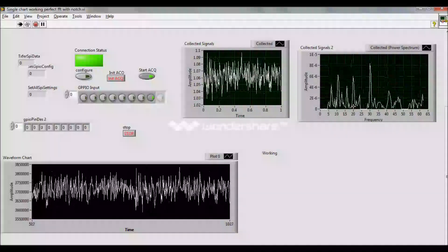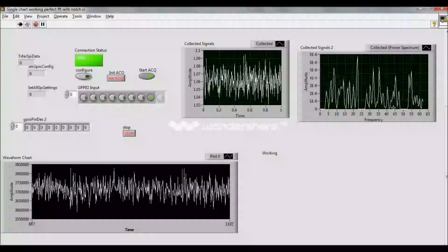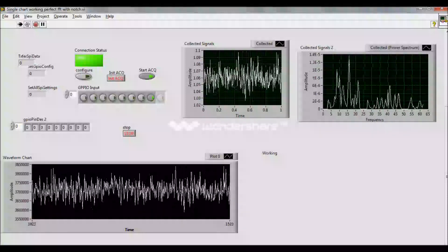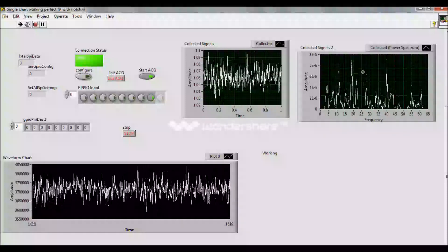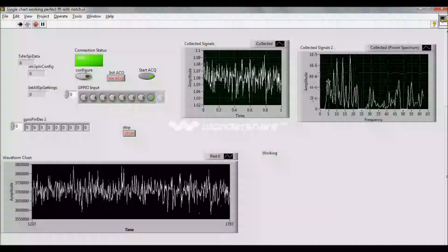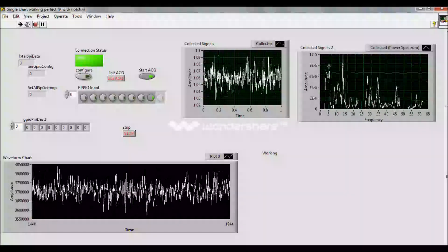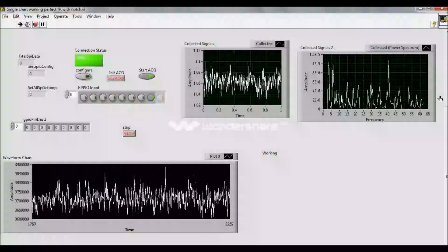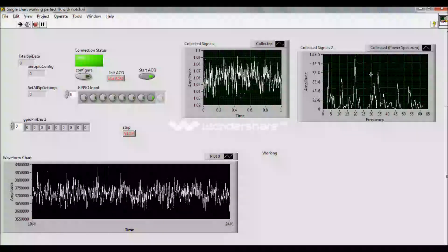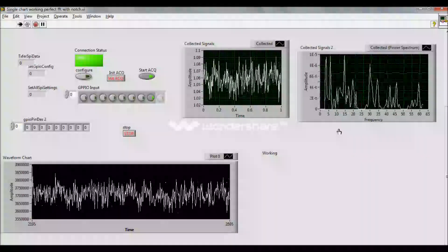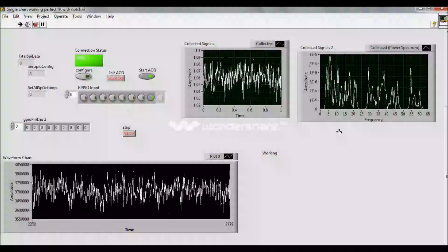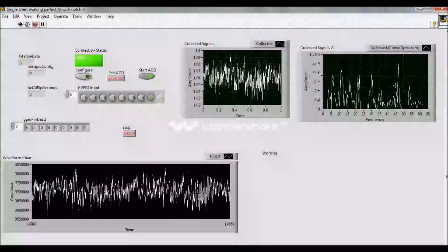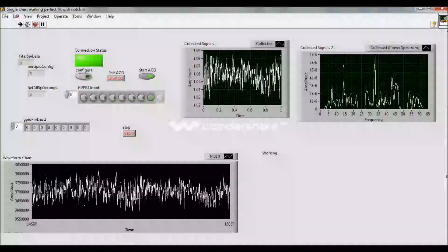This data is being processed and the FFT of it is displayed. In this project, what I will be doing is extracting the features from this EEG data. The effective pattern will be used to extract the data features, and the features extracted will be sent to my wheelchair. The features extracted will be used to command my wheelchair.